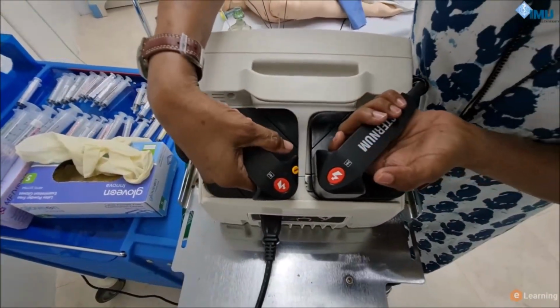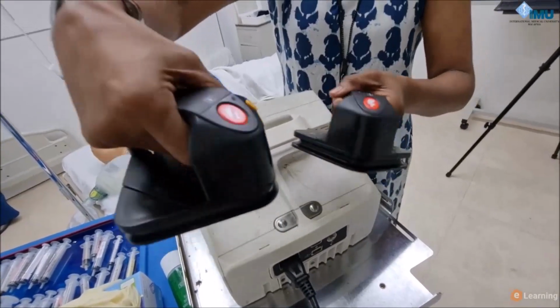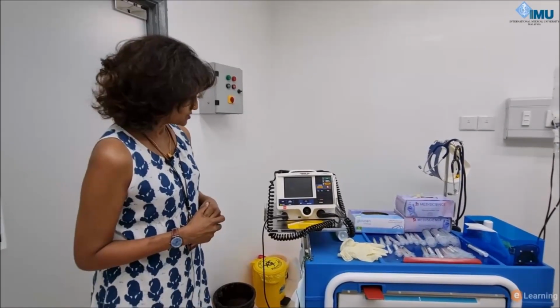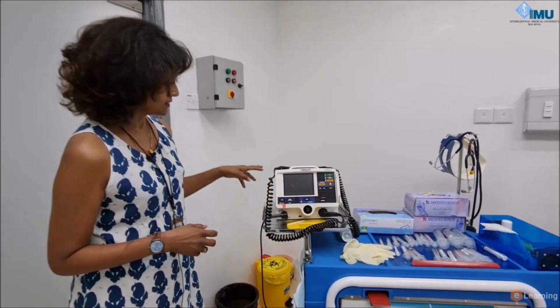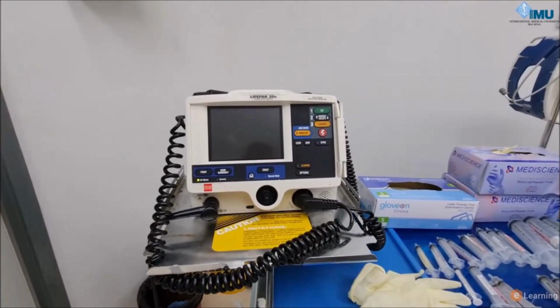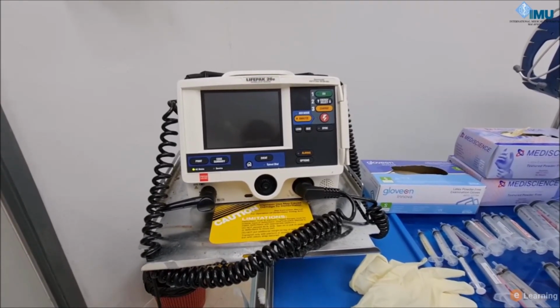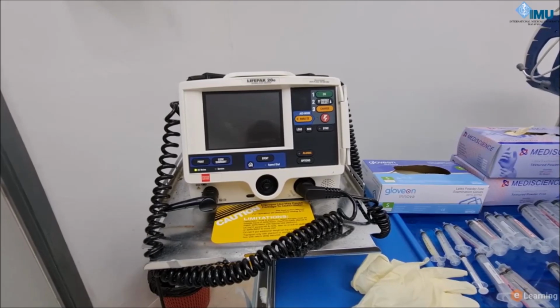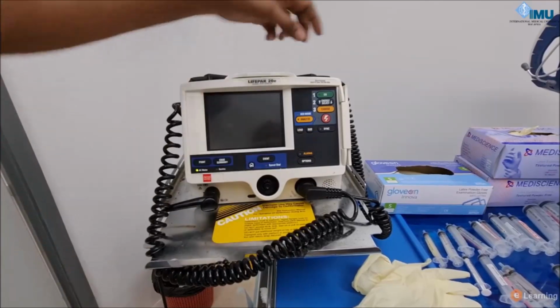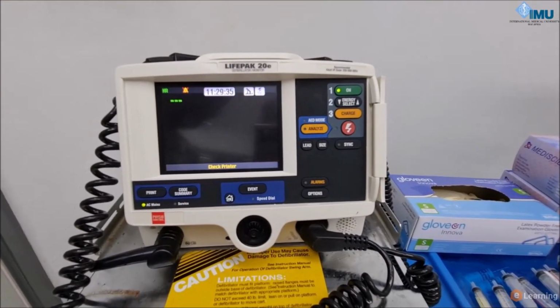How do I use it? Okay, so it's fitted very well snugly here, so you just pull it off and it comes off. Okay, so these are the paddles. I talked to you about the components. Now I'm going to take you through how to charge the system and deliver the shock. Let's start off with, let's say, a cardiac arrest situation where CPR is already ongoing and we have applied the monitor. So I will switch it on first, and then let's wait now.